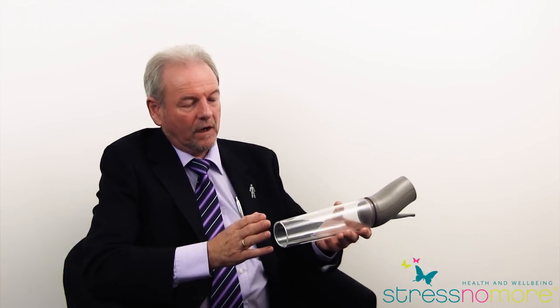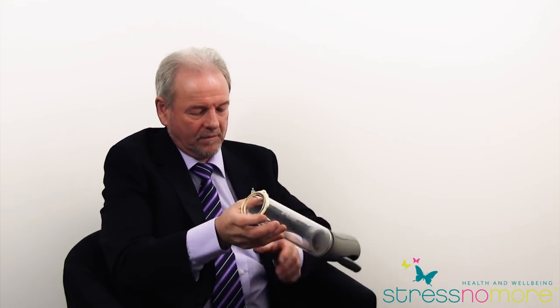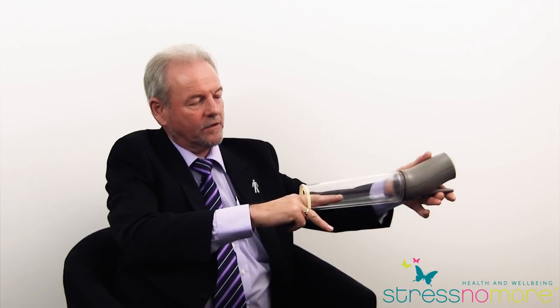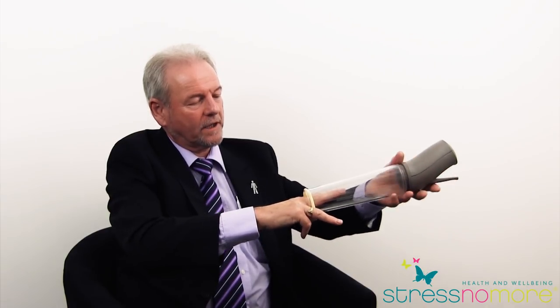I suggest end of the fifth exercise session. You've been doing your ten minutes, the penis is in good condition, you've got lubricant here. You take the larger beige ring, stretch it over the end. Penis in here. You pump gently, create the erection, and then slide the ring off the end.